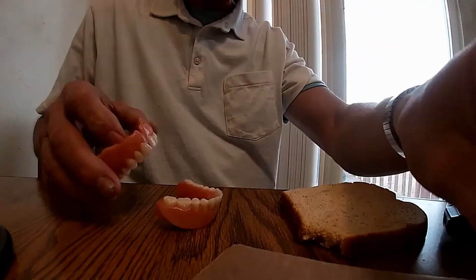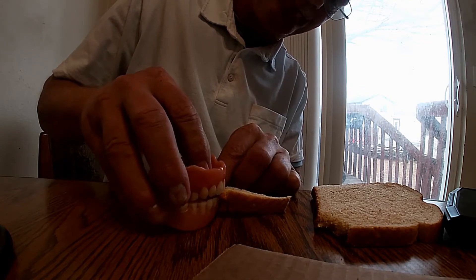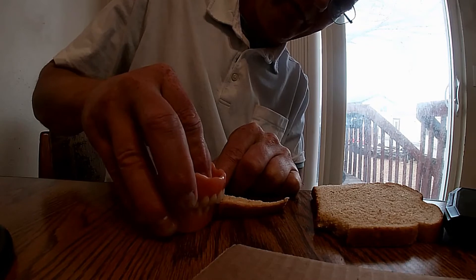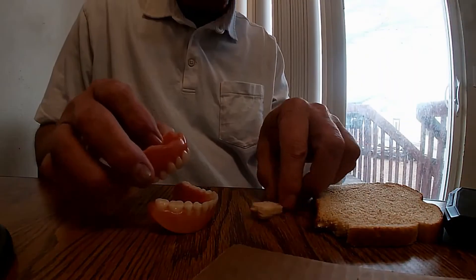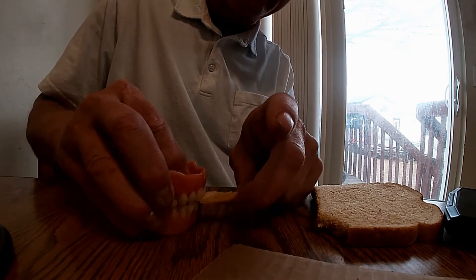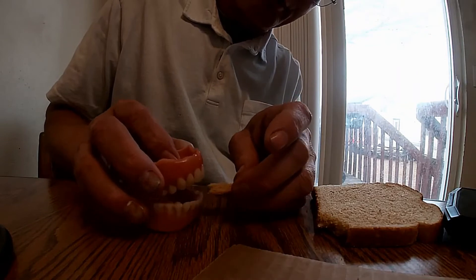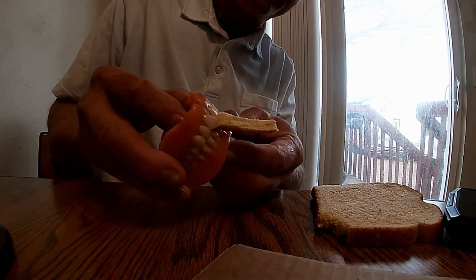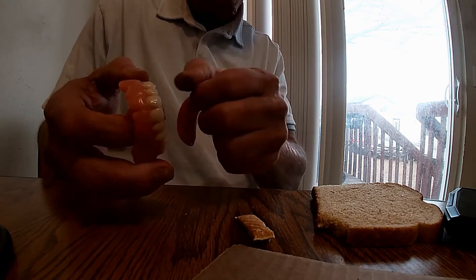That's what happens when you slice through the bread. The teeth coming over the top of the other teeth — wow, this is hard to do — actually slices through it, just like that. Whereas if you have them coming together in the front like so, now you're not slicing through — you have to tear it. It's not coming loose; you have to tear it loose. So the reason the front teeth go over the bottom teeth is because of the scissor action — that's what actually cuts off the bread, or whatever you're eating at the time.